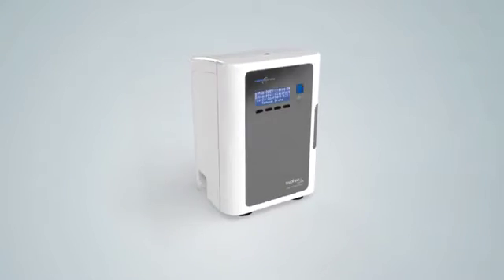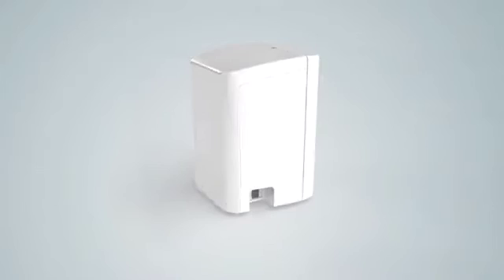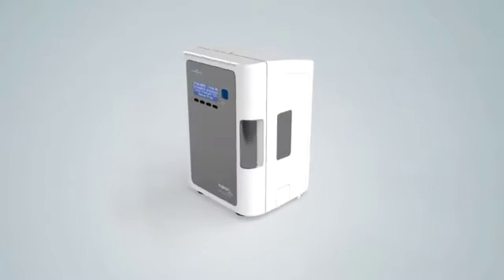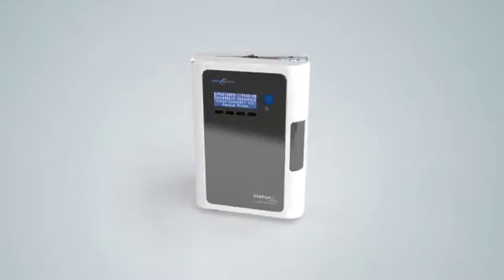The TROPHON EPR is extremely sophisticated yet simple to use. Its proprietary technology ensures effective automated high-level disinfection with every cycle.